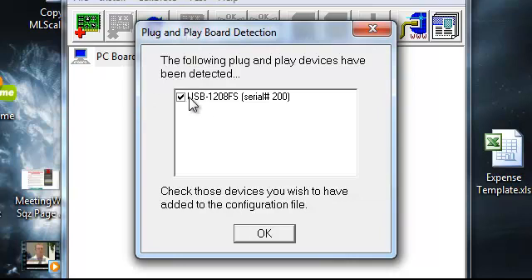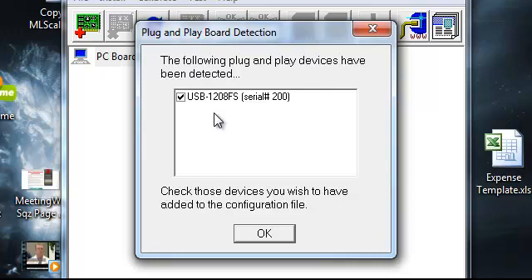Now, what this means is that this is recognizing that there is a device plugged into the USB port. If you don't see this, what you want to do is check your connections, check your USB port, make sure the cord's plugged in properly there. Check the device, like the JVA, make sure that the USB port is plugged in there. And then if you're running a JawTracker, make sure all the cords and everything are plugged in properly.